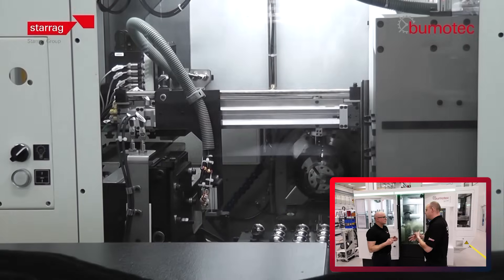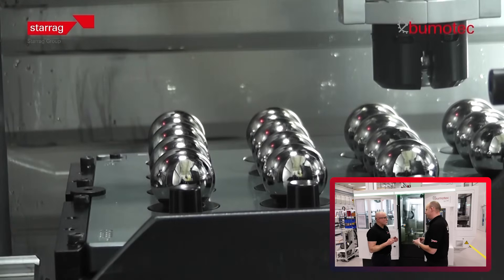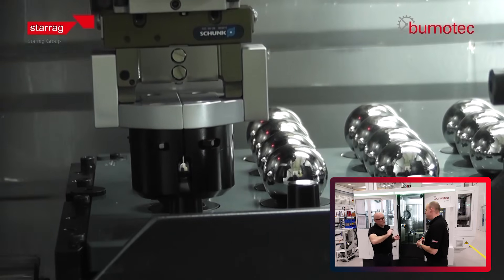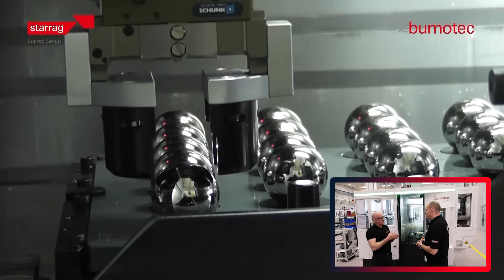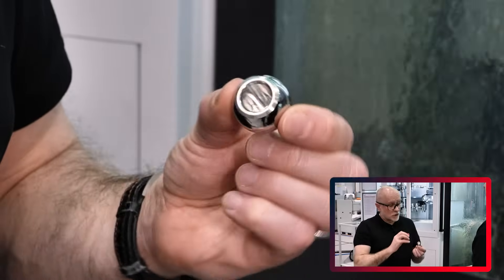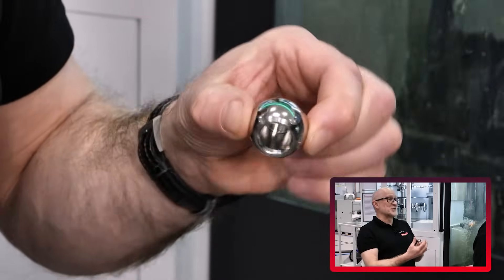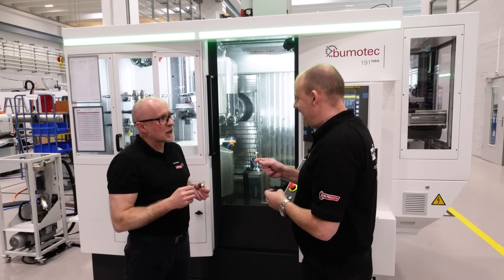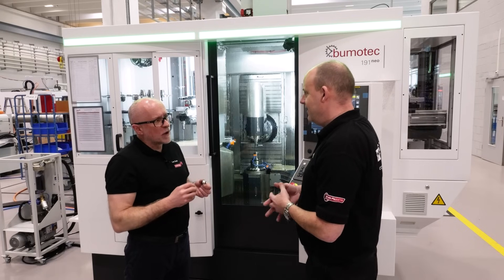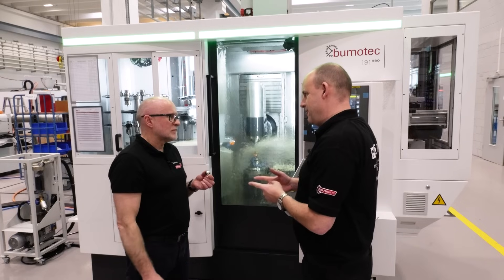Okay, the tolerances are really important but in a slightly different area of this, aren't they? They are — the sphericity is the really important measurement, and there's a certain way that the industry measures the sphericity of a femoral ball, because there are different ways to do it. And what is that tolerance? It's about two and a half microns on these parts.